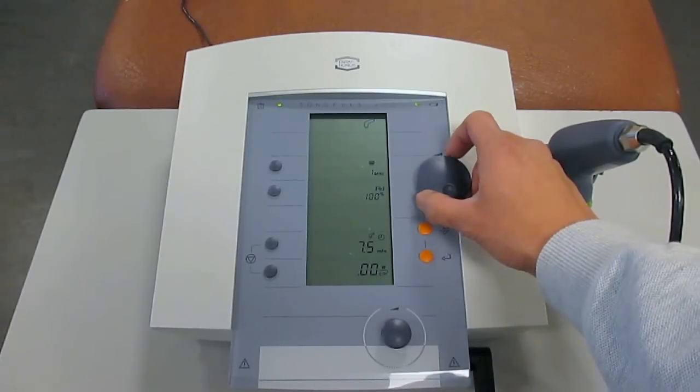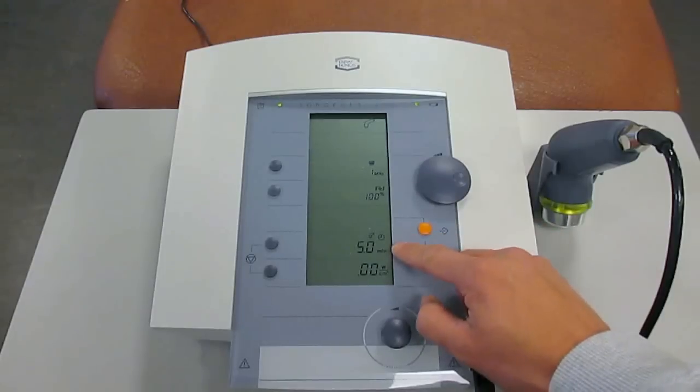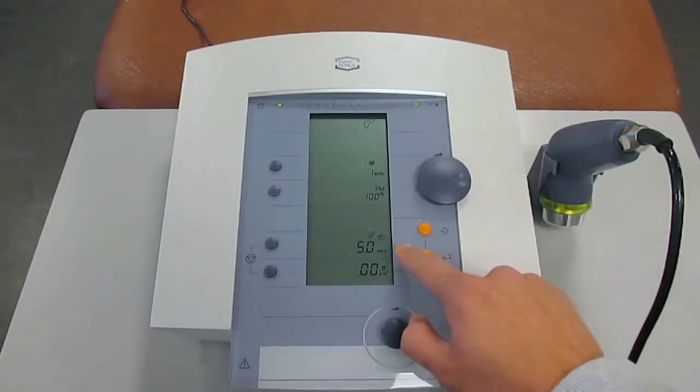Let's say for example, I want to treat the patient for 5 minutes. Once you turn up the time setting, the ultrasound intensity setting will also appear.